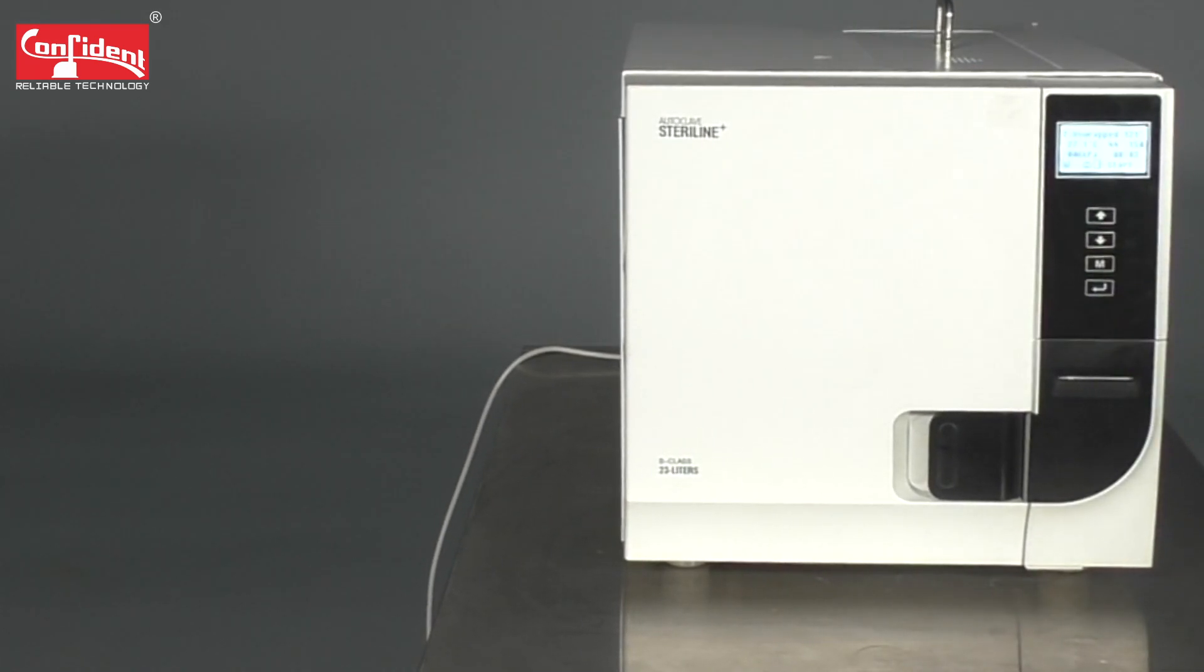Now, you can observe that the sterilization process has begun. The device will show an indication of different stages of the process. Once the sterilization is complete, press the enter button to get a printout.